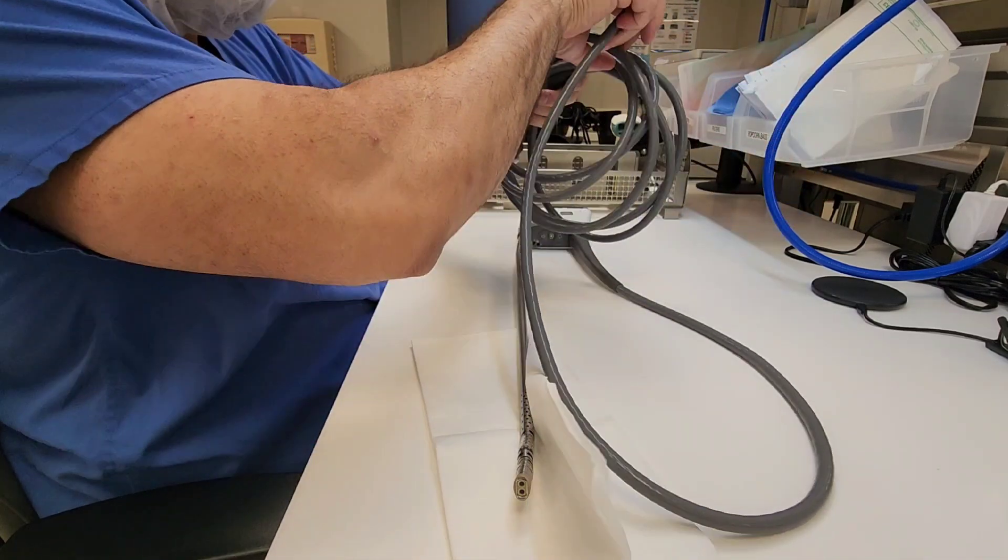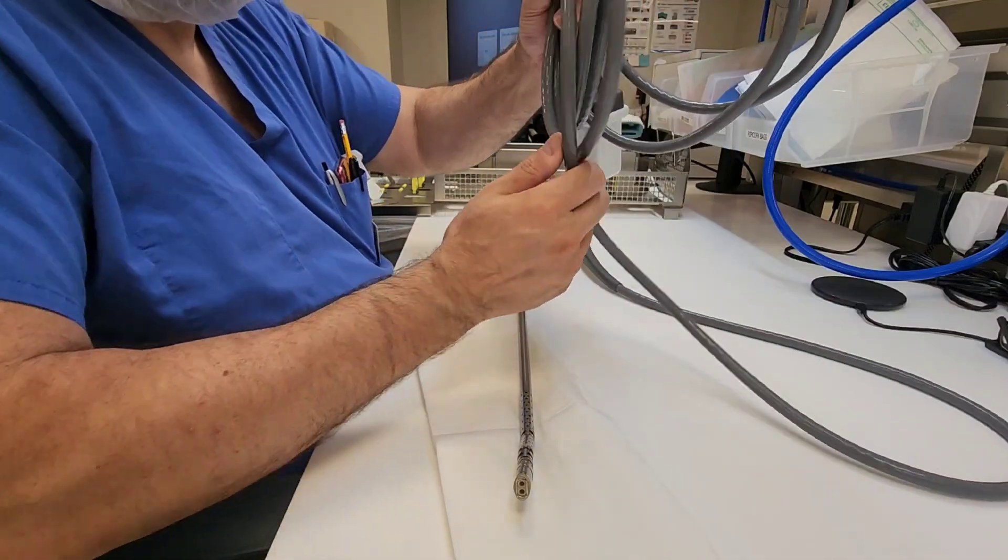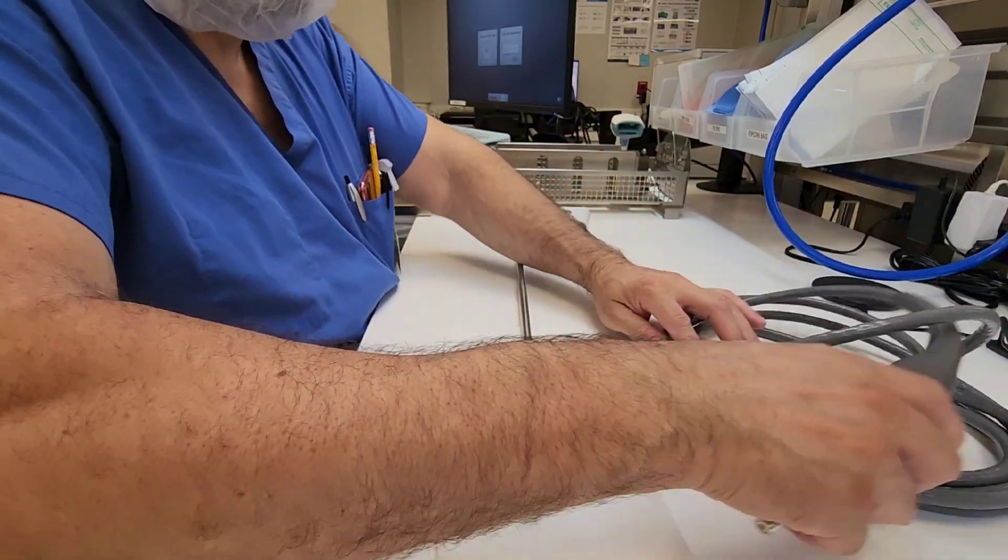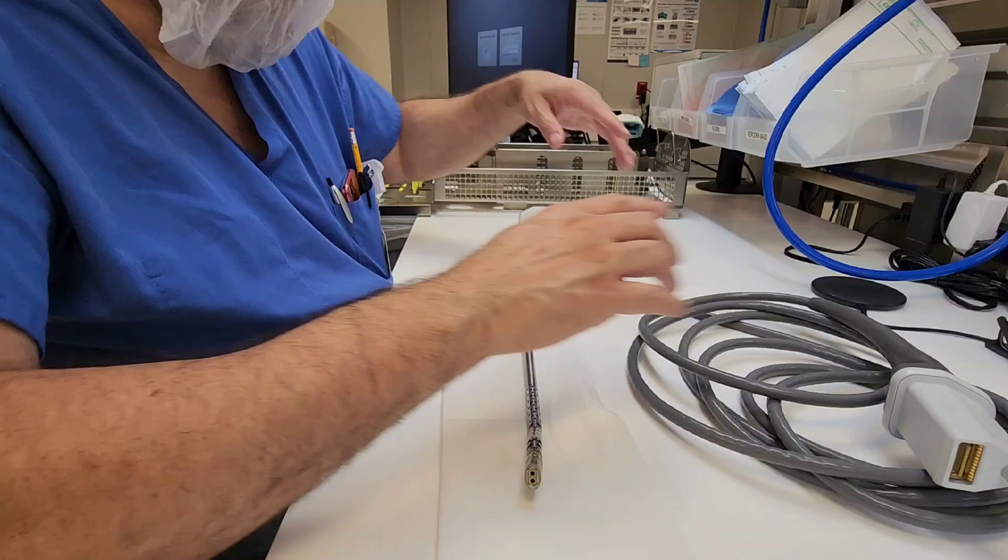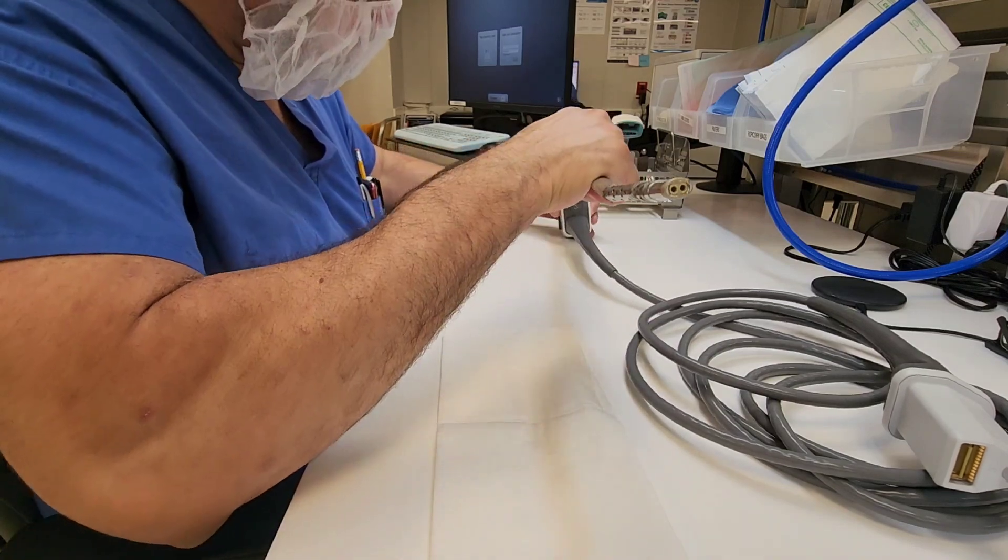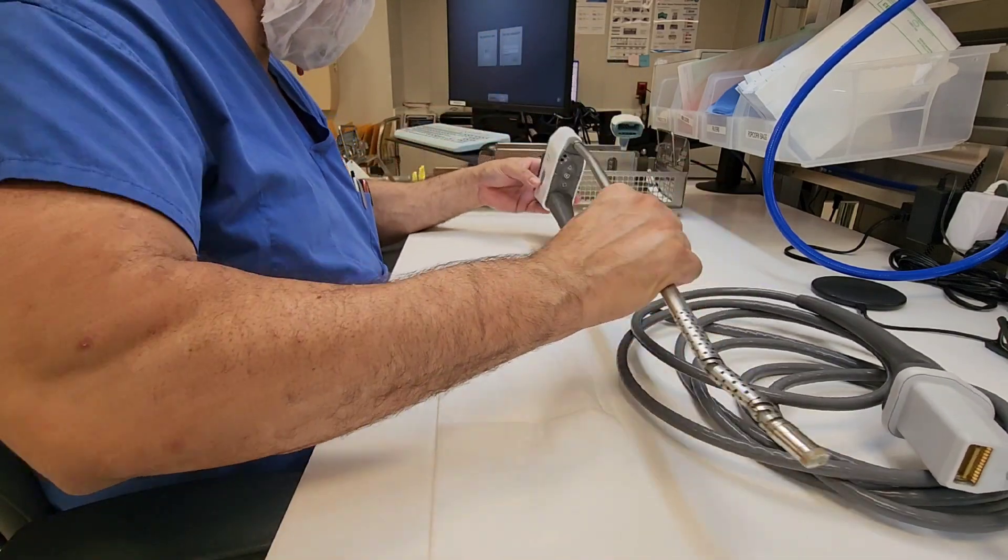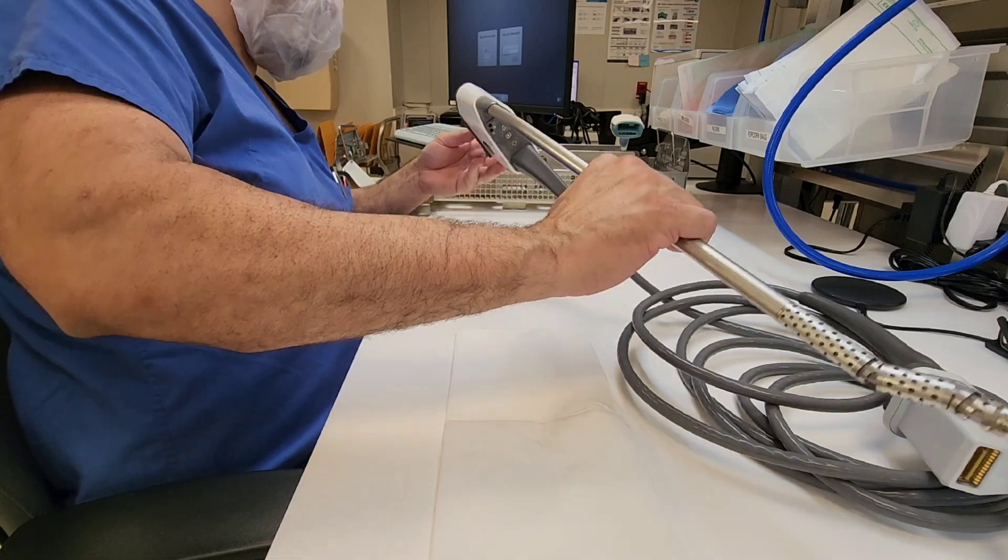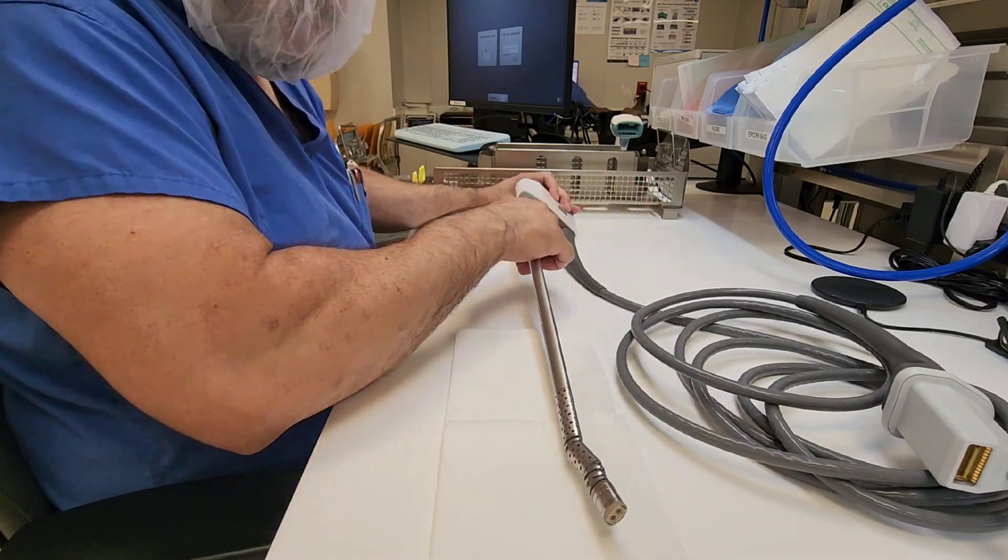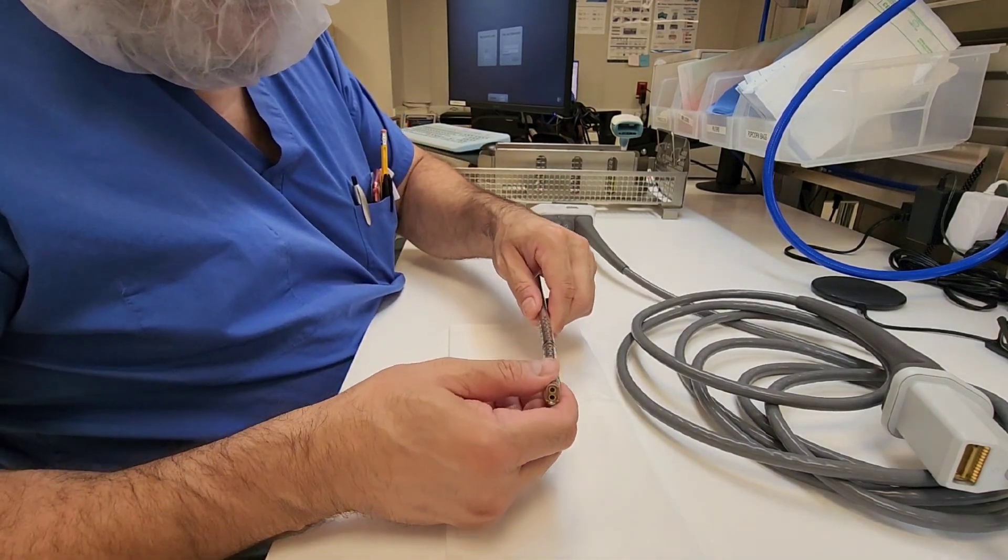We're going to coil our cable up, not too tight, not too loose, because I'm going to need more space to conduct my testing and inspecting of this instrument. You want to inspect the housing, make sure there's no cracks and that it is not dripping wet, the cable is not frayed or disconnected, and look at the connection block for any kinds of damages.